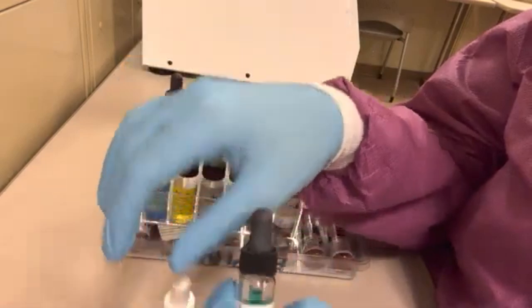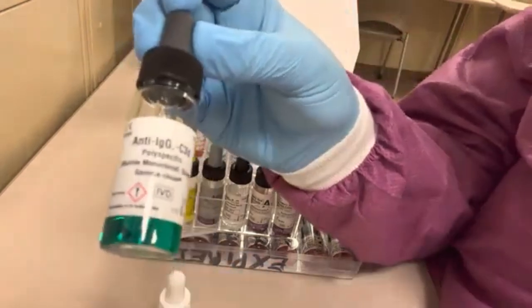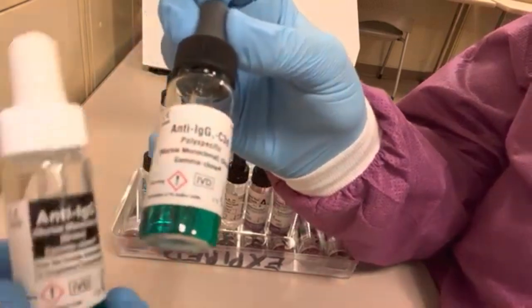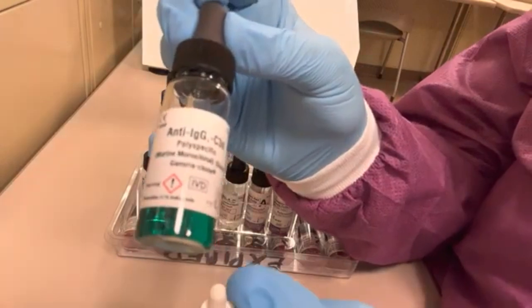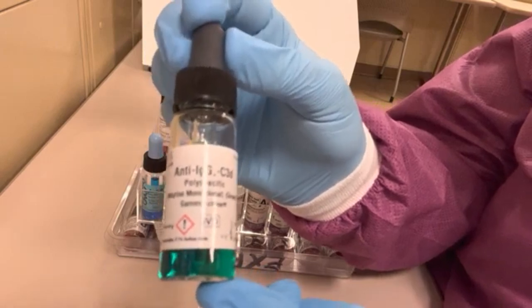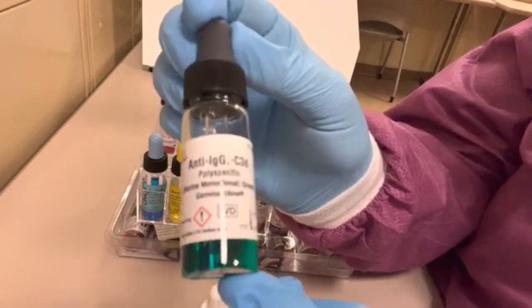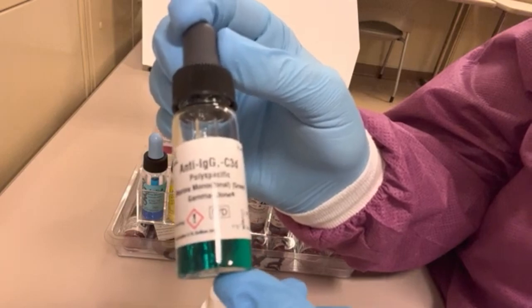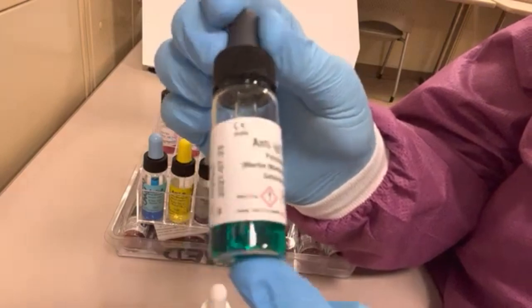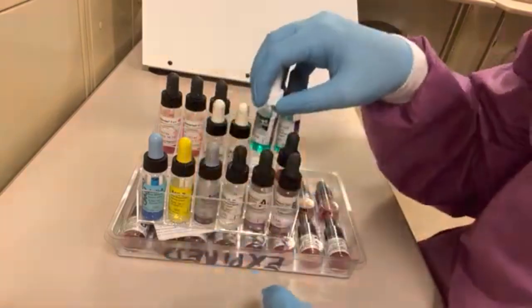Anti-IgG reagent is usually green in color, though some are clear. The anti-IgG C3D reagent is polyspecific — unlike the monospecific anti-IgG, it is not specific for just one antibody type. This reagent is used for DATs for the detection of in vivo sensitization of red blood cells coated with IgG antibodies or complement components. It is also usually green in color, though some may be clear.